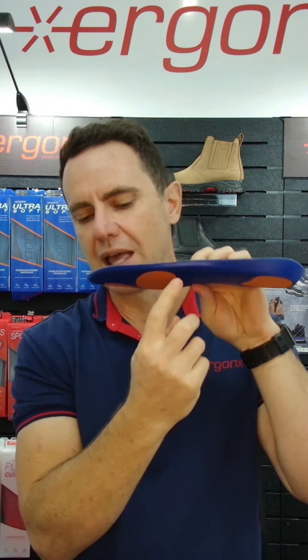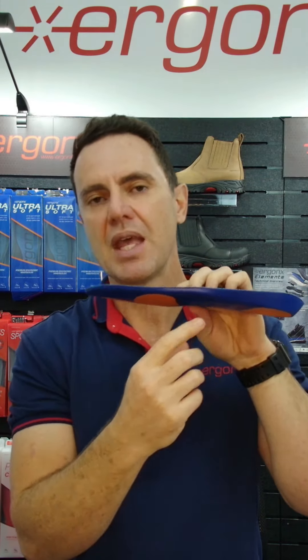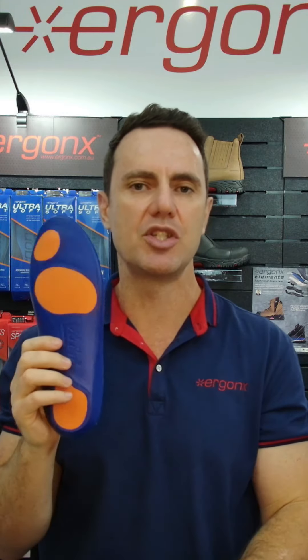So if you look for all these features, including the nice high lateral arch support, these will help to stabilize your feet, rest your foot across the workday, and make your feet generally more comfortable.